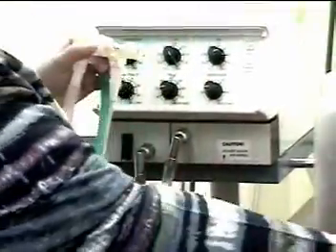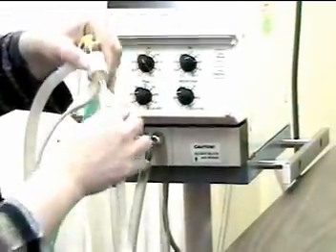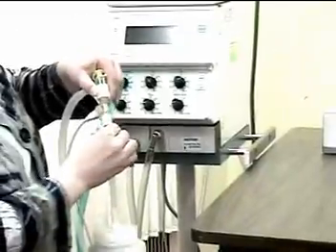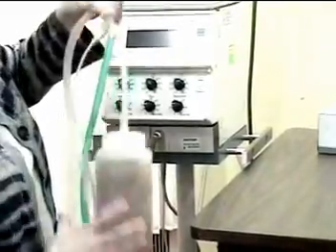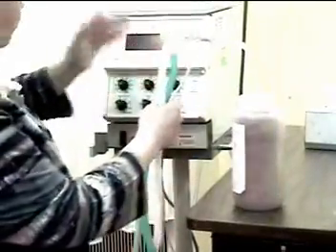Typically we would put an HME if we were using this setup. For today, I'm going to put the patient baby log simulator on here.